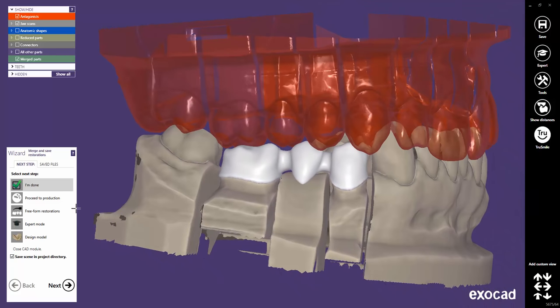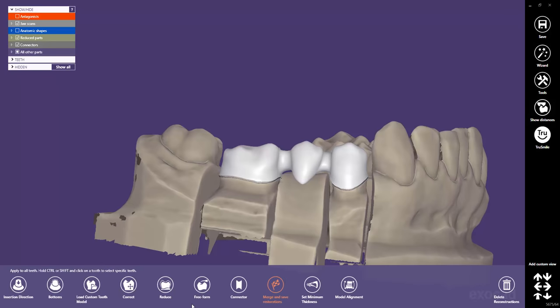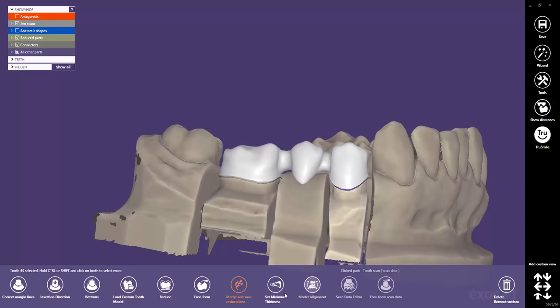In this example, you've arrived at the last wizard step and the scene has not been closed and saved yet. Select Expert Mode in the wizard, or click on Expert in the right frame. Many people think that changing the margin line on a finished design is not possible, as this step is not available if you have started the Expert Mode by clicking on the background. It is only available when you select a tooth first, as the margin line definition is a tooth individual operation. Click on the restoration part of the tooth you want to change. Now you can find the correct margin lines step.